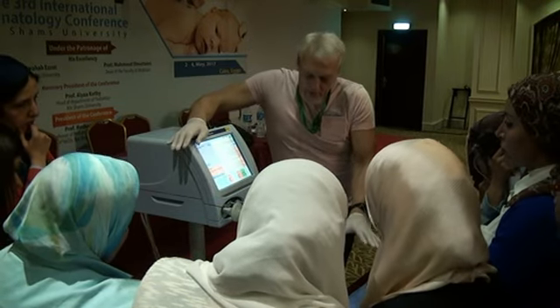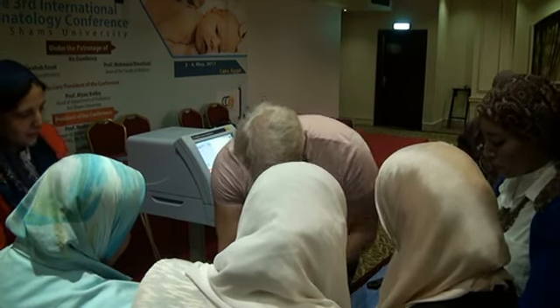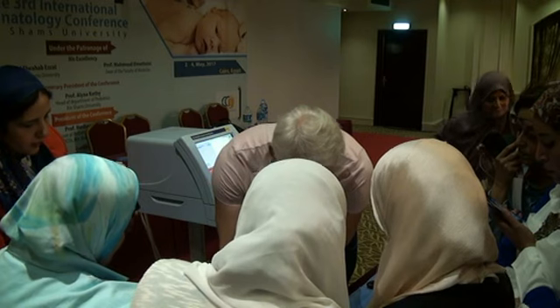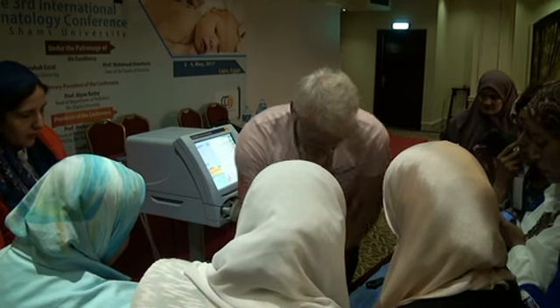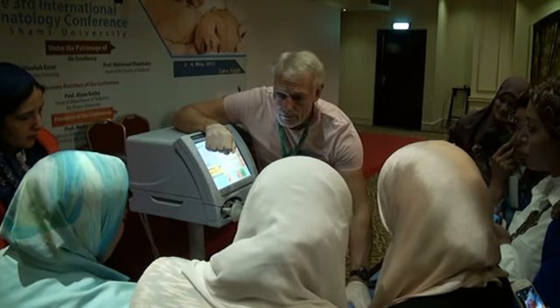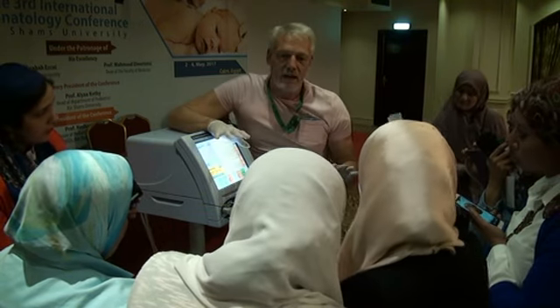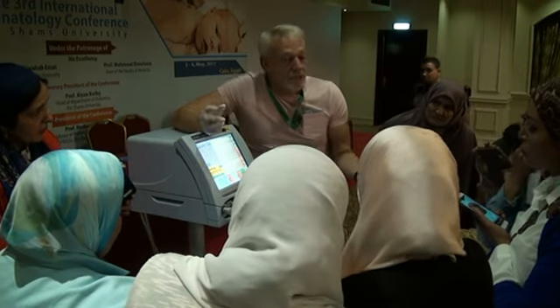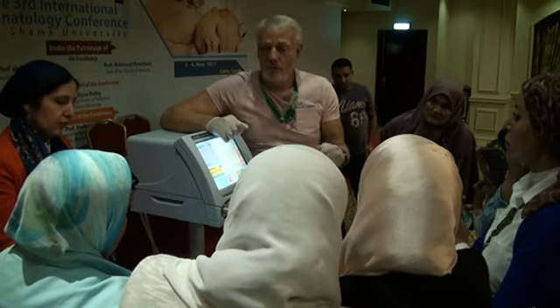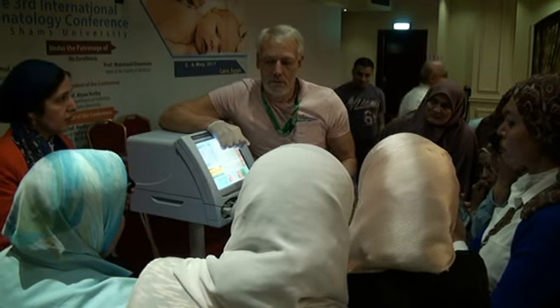I've got a fairly compliant lung, but once again I've got inline suction, you haven't. So we do our little bit of suction, and we know in oscillation we really don't want to do that. And we connect it. One of the problems in reconnecting with oscillation, this lung is beautiful. This lung is going back to normal very quickly. Just remember your pathology. That can still take half an hour. So once you've disconnected and reconnected, and the nurse calls you and says the baby's desaturating, it's in 100%, what do I do? It's a recruitment maneuver. And that's the commonest thing that we do.